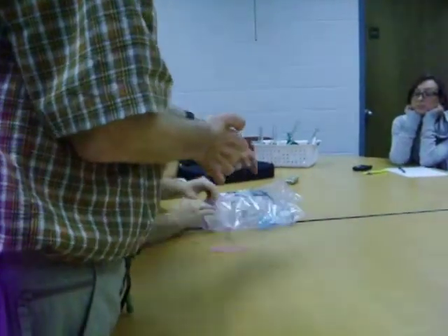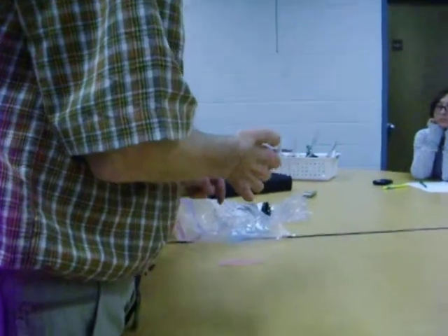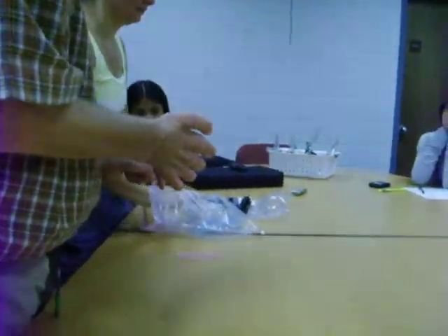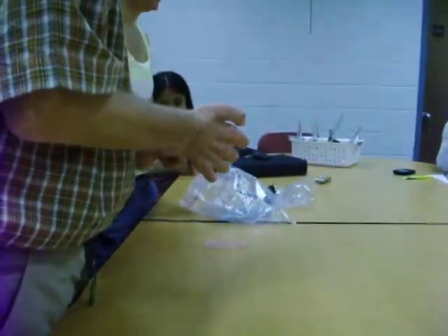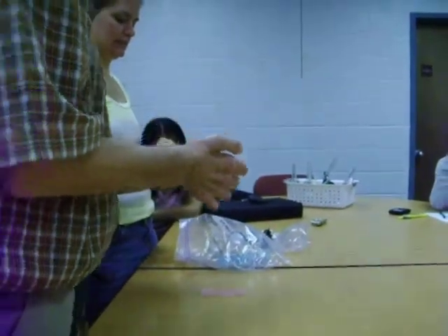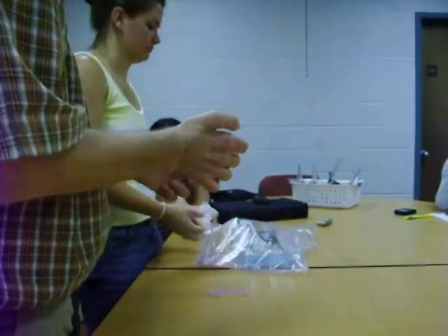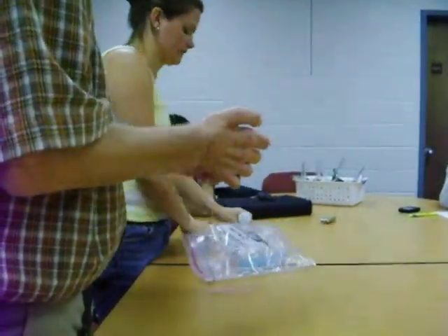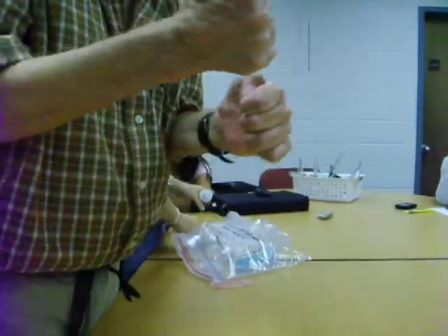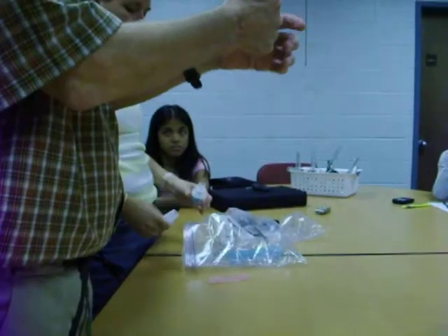Take your nebulizer out. Put that part in the T-piece next, without the mouthpiece — oh, the mouthpiece is already on. What I wanted to emphasize is the mouthpiece: did it come in a separate plastic pack? Yes, it did. Let's put it back in. I wanted to show you that the mouthpiece comes in a little plastic pack. Just tear a hole in it and put the mouthpiece on without touching it.